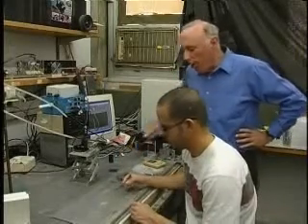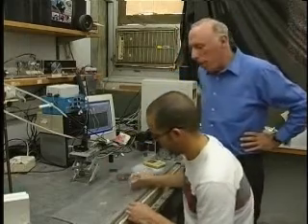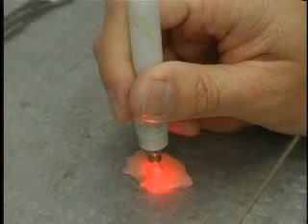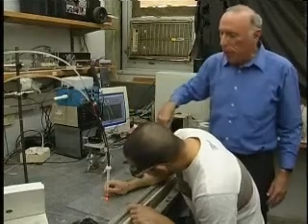You see here is a piece of meat — actually, schnitzel — and you see here a cut in the schnitzel, and we are going to use a laser to bond the cut. The radiation of the laser goes into one fiber and illuminates the albumin.